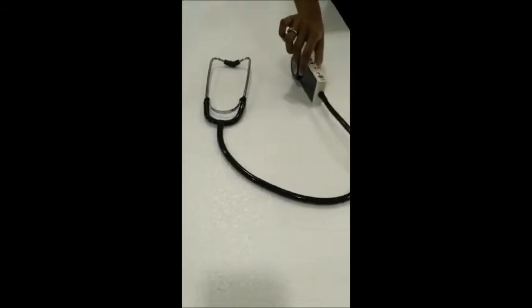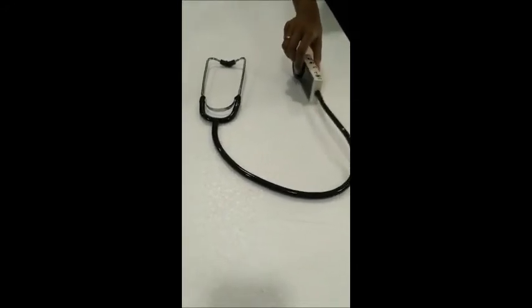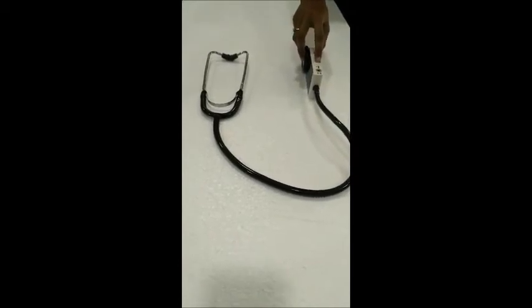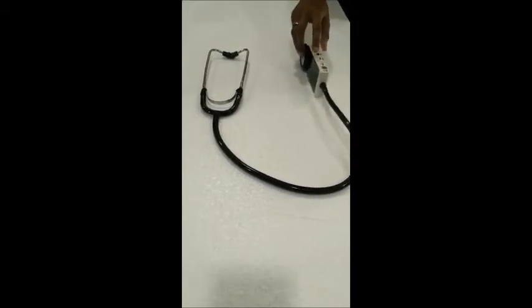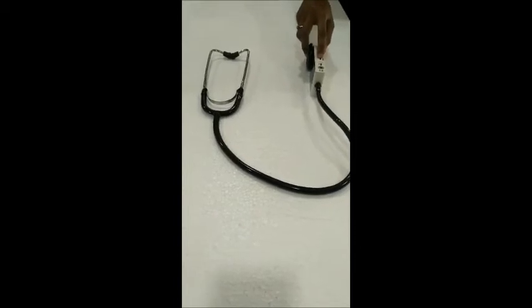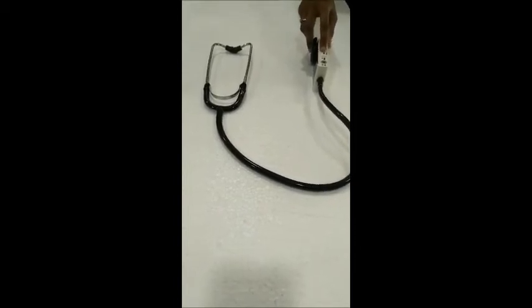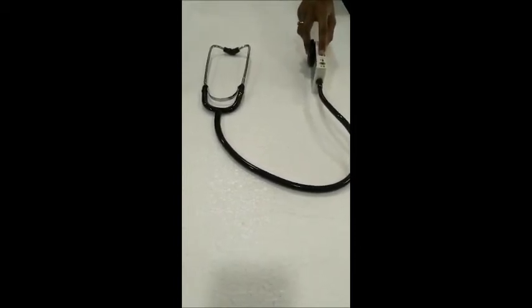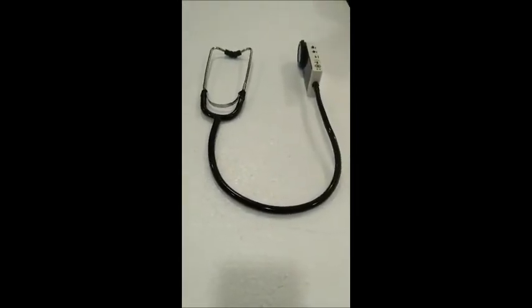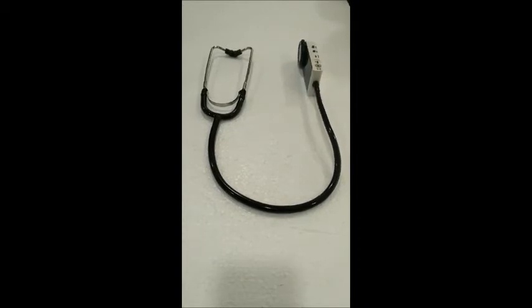Next is the mode switch. It is used to change between three different modes. First is the diaphragm mode, next is the wide or extended mode, and the third is the bell mode. On switching between these three modes, the user could hear three different oscillations.